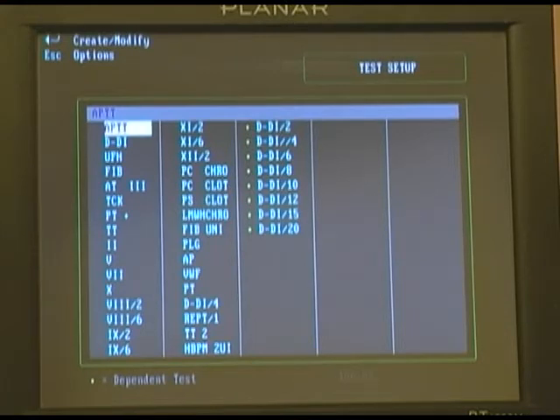These are the tests — both user-defined and STAGO-specific tests — that currently reside on your instrument.